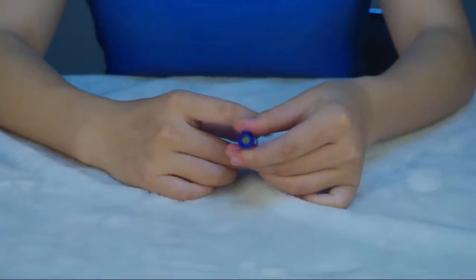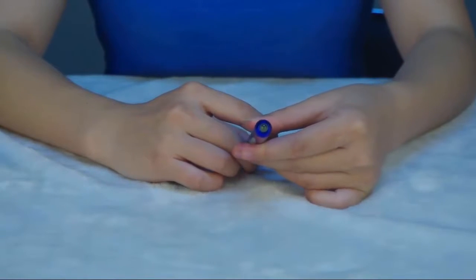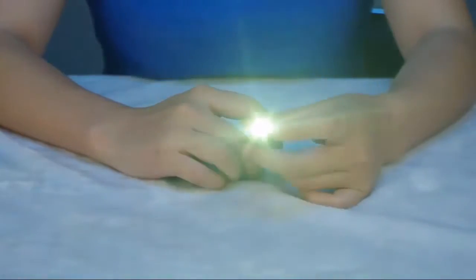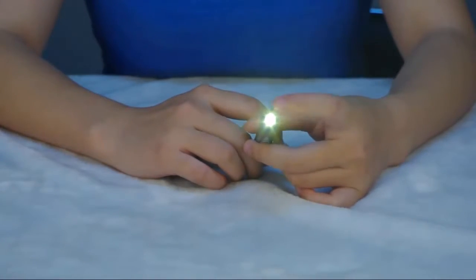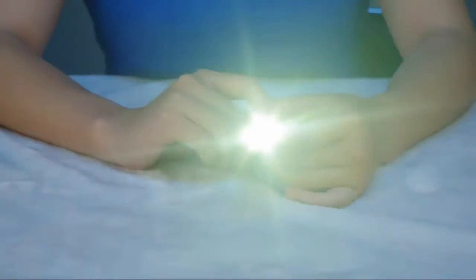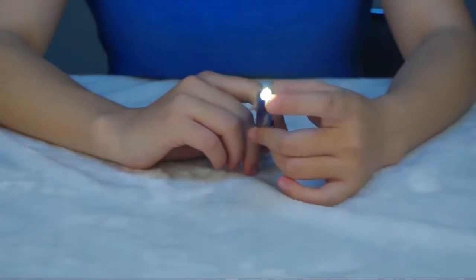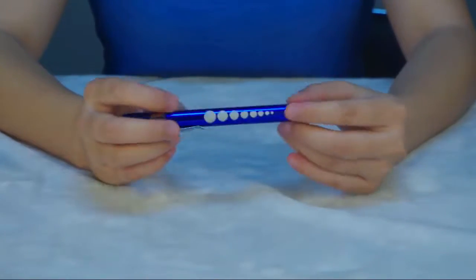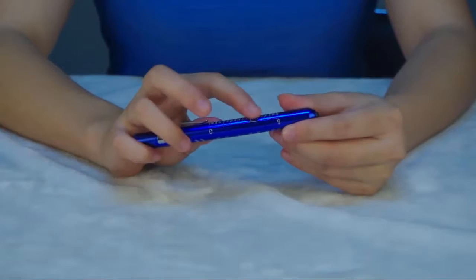It is made of energy-saving white LED bulb. The bulb provides comfortable light when you check the reaction of people's pupils with more power. There is a pupil gauge and scale.